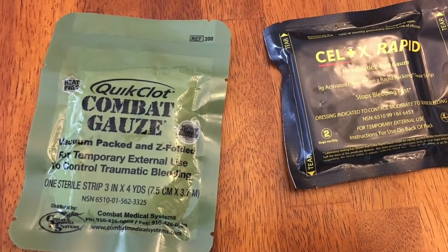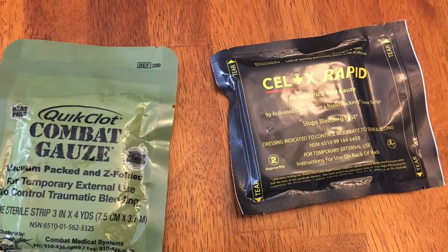If we talk about what is the best product you can buy to save your life, to save a friend's life, then let's talk about hemostatic agents. This is the gold standard — this is what people are using for wound packing. This is Combat Gauze Celox. I get it, these things are expensive. You're talking about $45 to $55 for brand new Combat Gauze. That's our hemostatic agent.